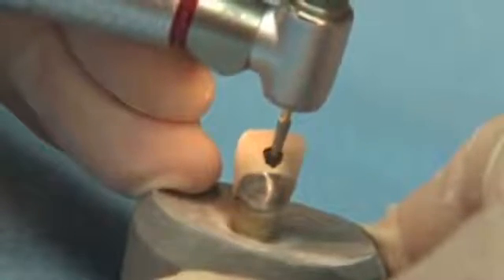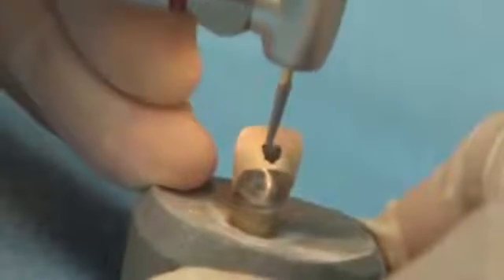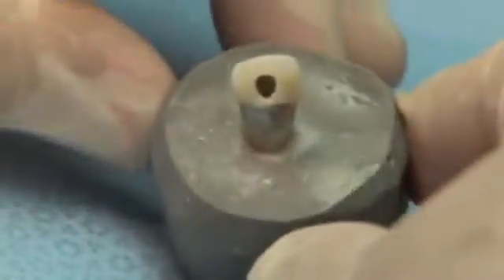If your goal is to complete the required preparation with speed, precision, and accuracy without vibration or chatter, Great White is the burr for you.